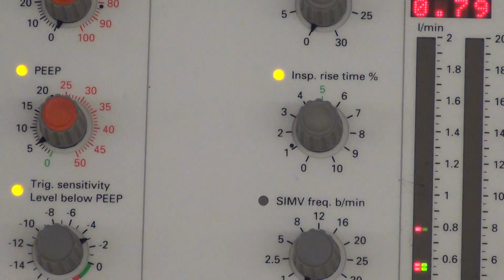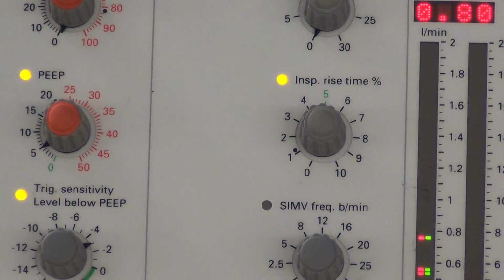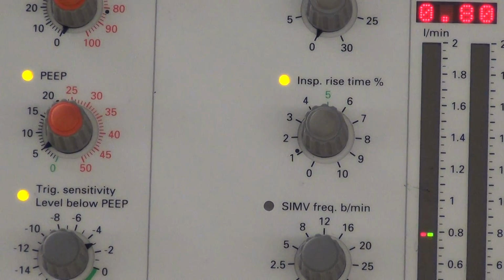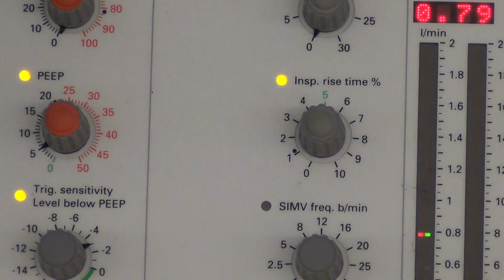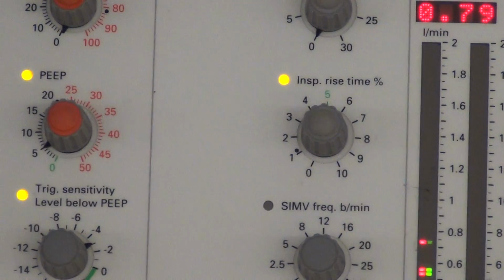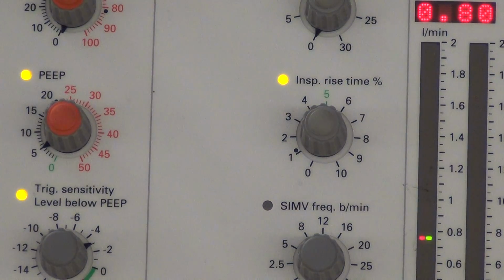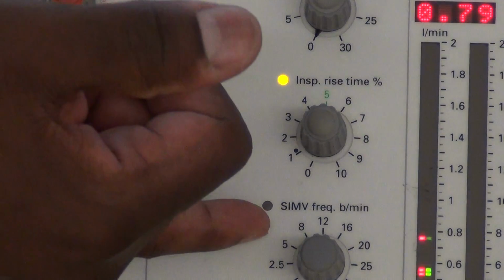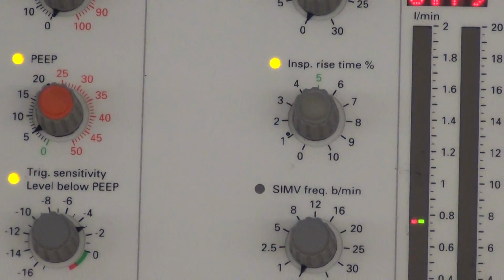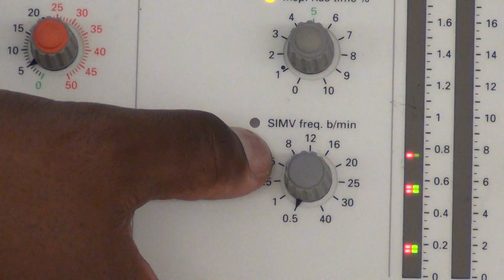But realistically, what dictates how we set the rise time? Respiratory rate, patient's inspiratory effort. If it looks like they're struggling to breathe, or air hungry. So you will make adjustments in the rise time. You do not receive an order for rise time. You talk about rise time to most people, they don't know what you're talking about. But rise time is one of those tools that we have at our disposal. SIMV, as I mentioned before, we're not going to focus on SIMV, but if we were in SIMV mode, that is how we would set our rate there.